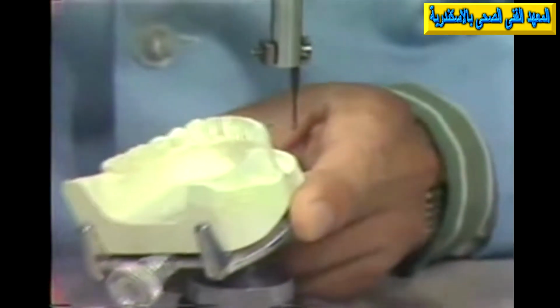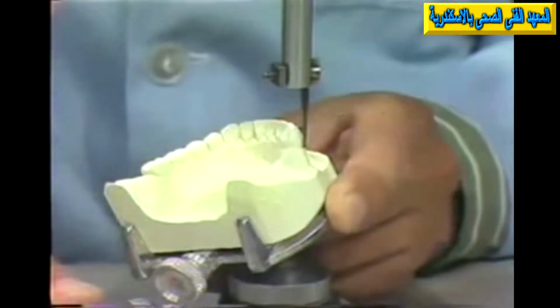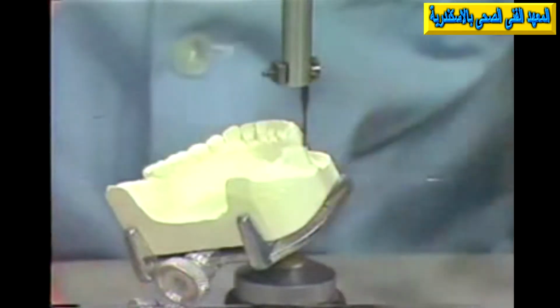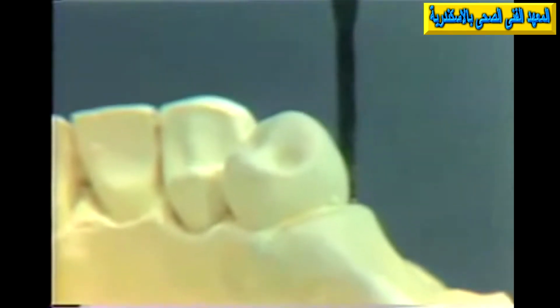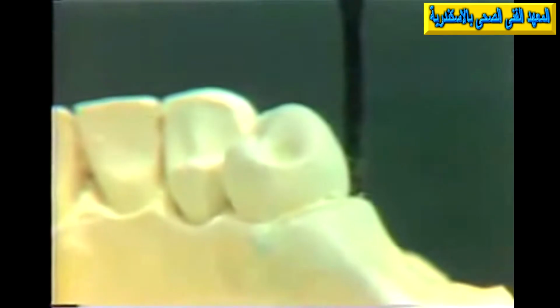We could tip it quite far to the other side and choose a path represented by the analyzing rod here, which perhaps was something on this order. Now notice again here the very high height of contour on this buccal surface has disappeared. In fact, the height of contour is very low. It is perhaps right at the cervical. There may be no undercut visible at all. This would create a path of insertion which would give us real problems in terms of retention.